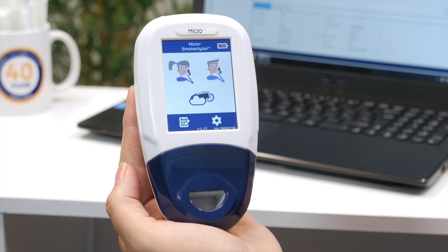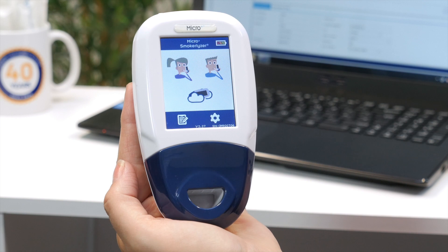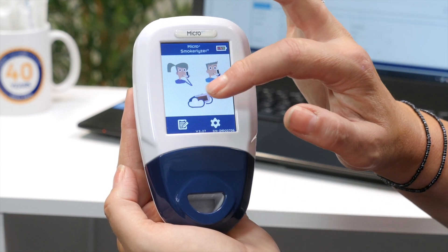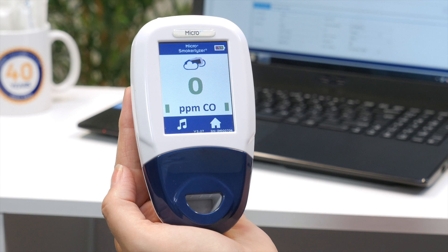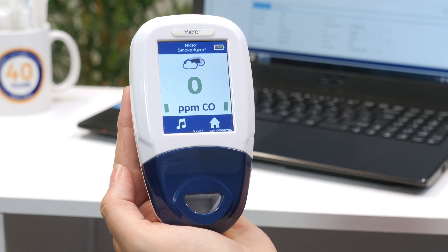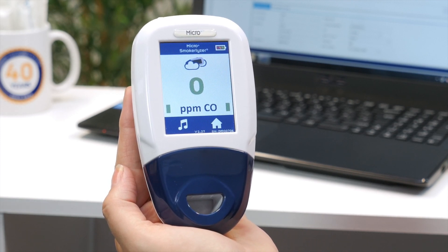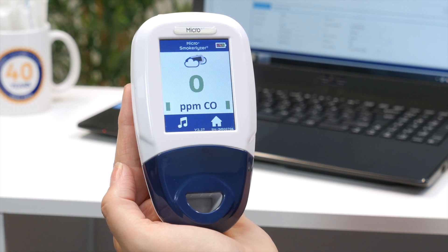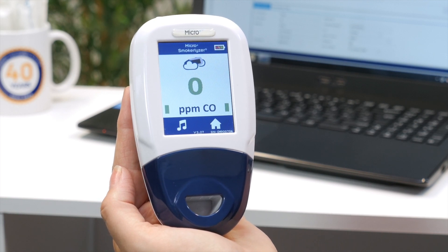The Micro+ Smokerlyzer has the ability to measure ambient levels of CO, which might detect why a non-smoker is giving off a high reading. To begin immediately monitoring environmental CO levels, click the ambient monitoring icon. The Micro+ Smokerlyzer will immediately begin sampling the atmosphere, and if there is any atmospheric CO, the readings will rise on screen.